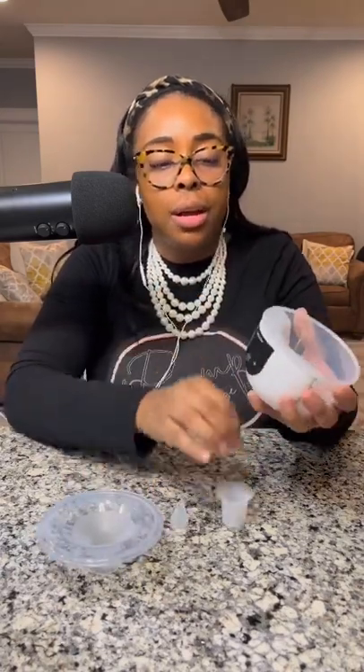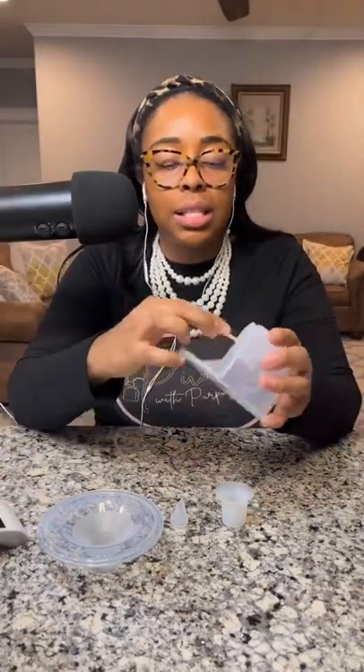I did use a 21, so I'm going to fully unassemble this so you can see me put it together. I get a lot of feedback like 'I'm so glad you put that together because I didn't know I was doing it incorrectly,' so I'm always going to assemble it for you. There's a piece on each side — this is it together — and you just grab both sides and pull it up to come apart.